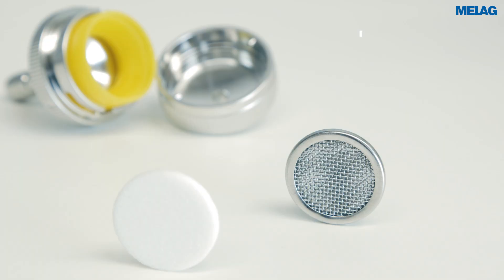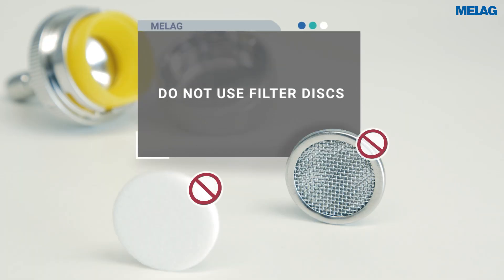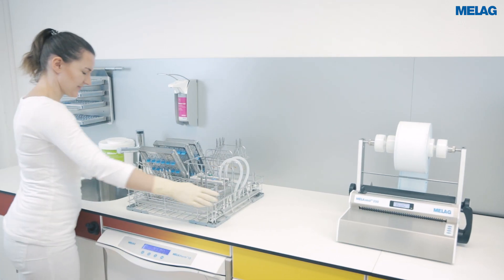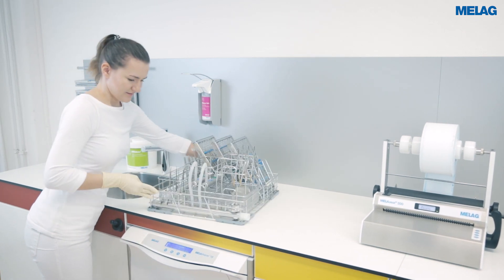The central filter eliminates the need for further filter discs in the adapters. When decontaminating transfer instruments, use the corresponding adapter directly on the injector rail.